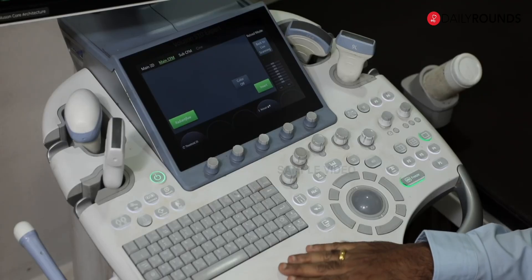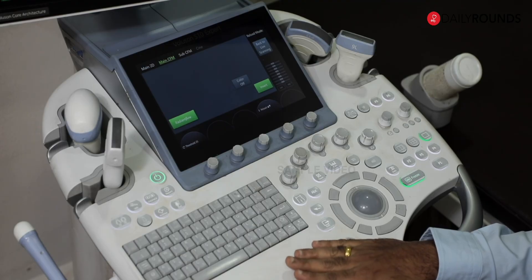This is my ultrasound machine — my eye to look inside the patient's body. The first part is the screen or monitor, the display screen of the machine. It is an LED screen nowadays. In some older ultrasound machines you might have a smaller, non-LED or non-LCD display. Make sure whenever you are looking at the screen, you are perfectly at the same level as the display. If you are using an LCD screen on an older machine, remember your eyesight should be perfectly aligned with the screen, as turning it to one side may give rise to artifactual appearances.